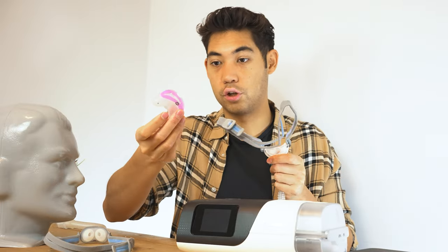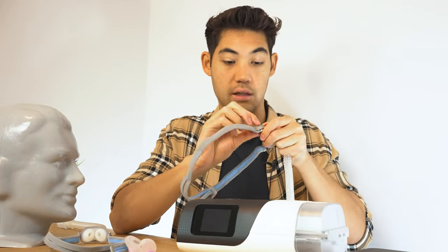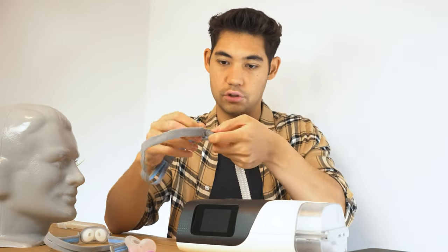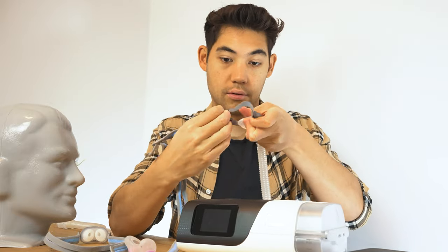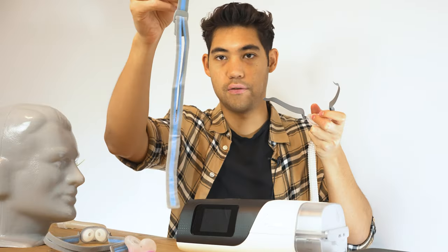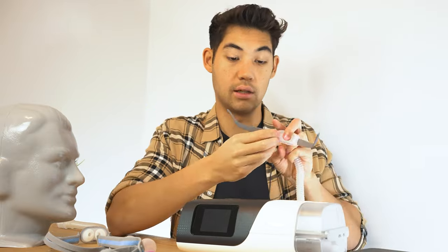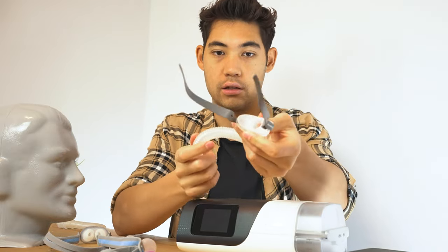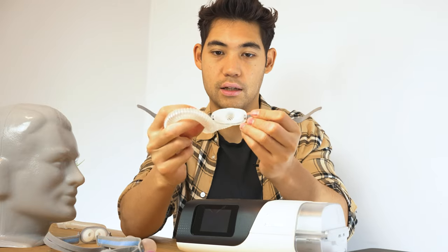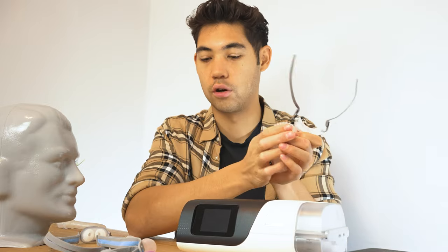To do a quick breakdown — I already showed how the cushion comes apart. To take the rest apart, we just slide this off here, pull it forward, and slide it around. You can easily scrub that with a little bit of light dish soap and clean it up really easily. Wipe the mask down with some wipes, and there's no real place for bacteria to get in. Overall, it's just a very easy mask to live with and to sleep with.